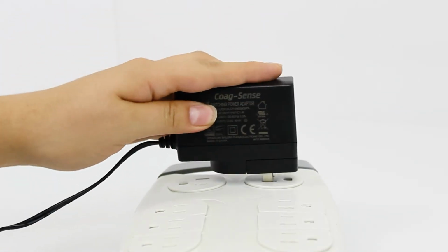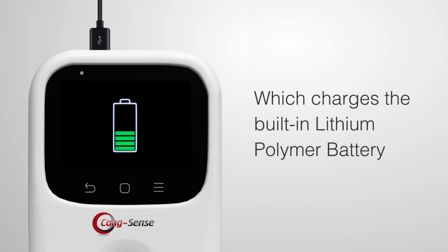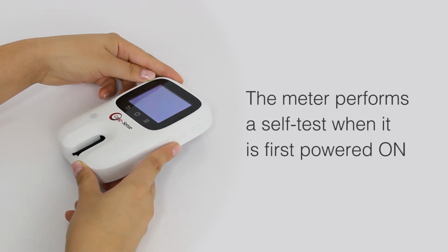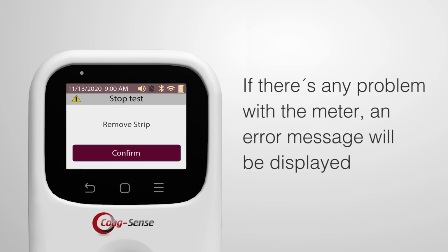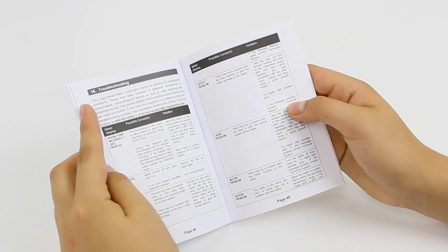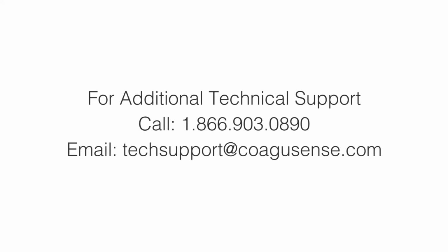The meter can be operated with a power adapter provided in the kit, which charges the built-in rechargeable lithium polymer battery. The meter performs a self-test when it is first powered on. If there's any problem with the meter, an error message will be displayed. For a complete list of error messages and their troubleshooting, please refer to the troubleshooting section in the user's manual or contact technical support.